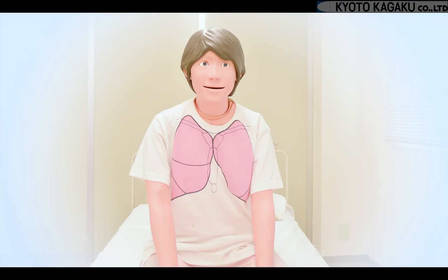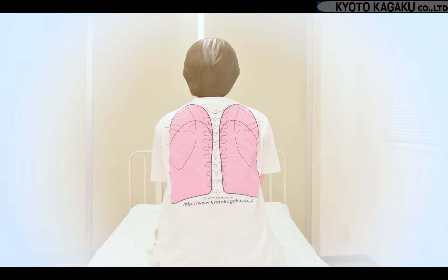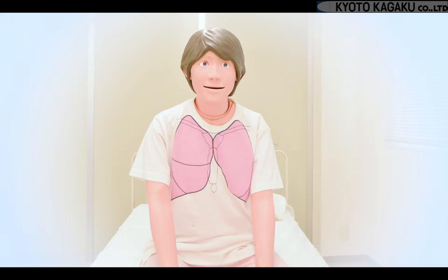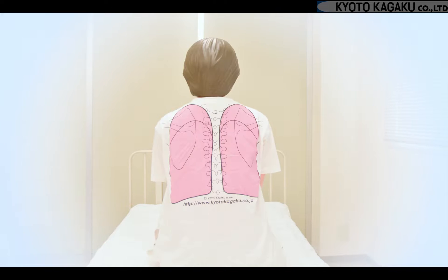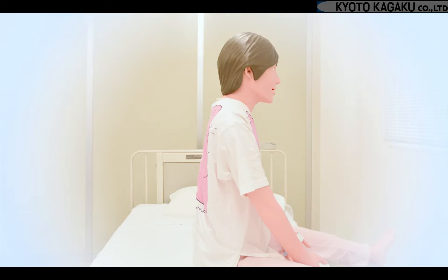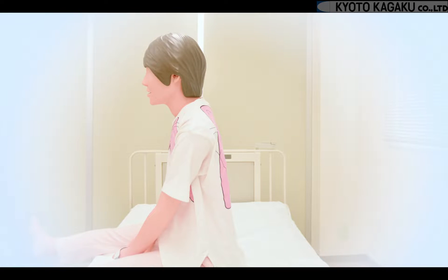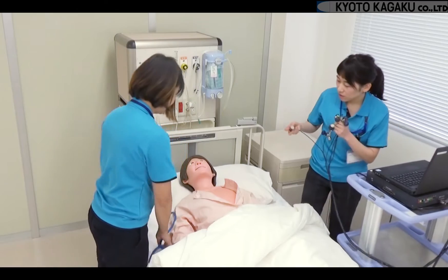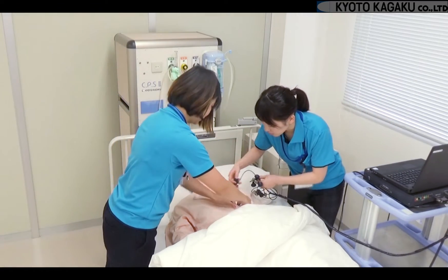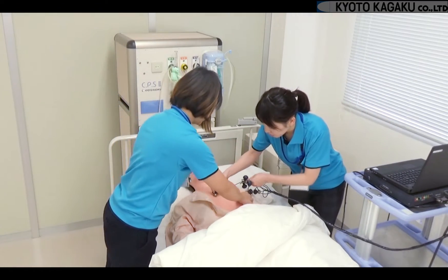Physico is a physical assessment simulator that can be used in a variety of simulation settings, like at a doctor's clinic or at the hospital. Physico can facilitate training in several examination skills.